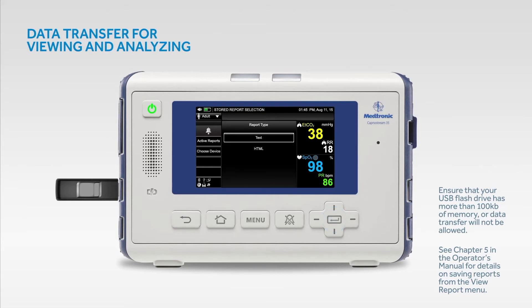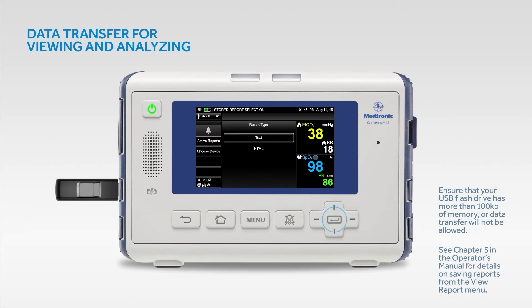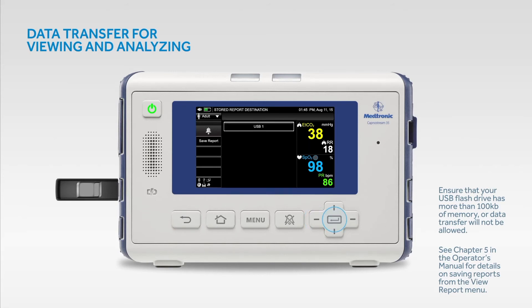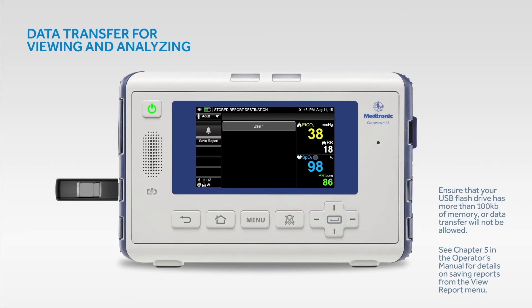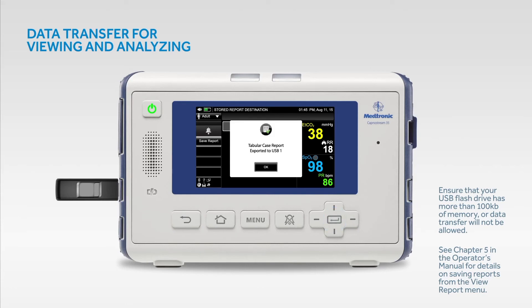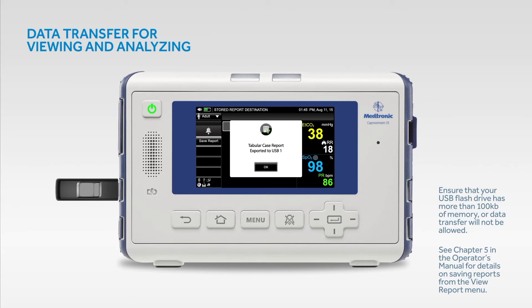If the option is provided, select the type of report — HTML or text. Select Choose Device and select the USB drive. Select Save Report. To review the data, upload the file from the USB drive to a local folder on your PC and open in HTML or Excel.